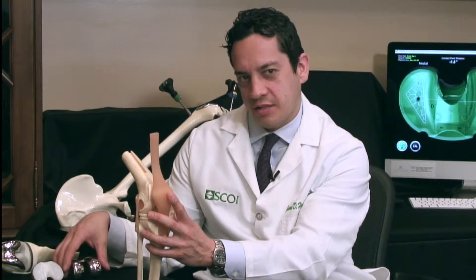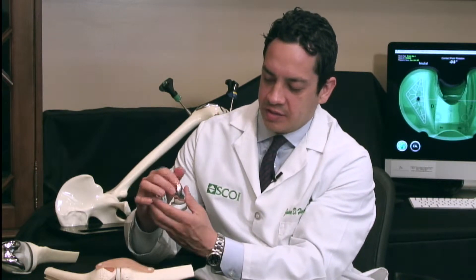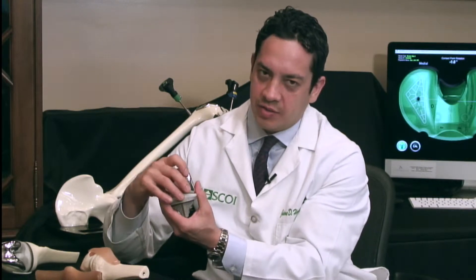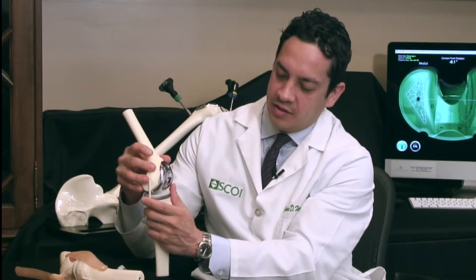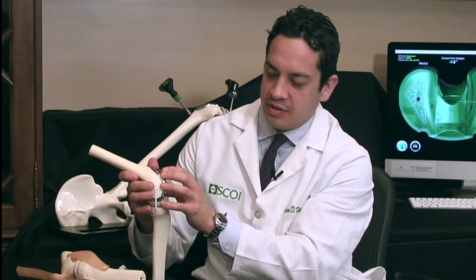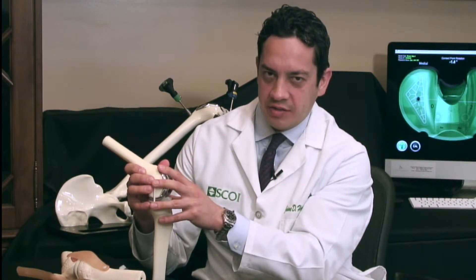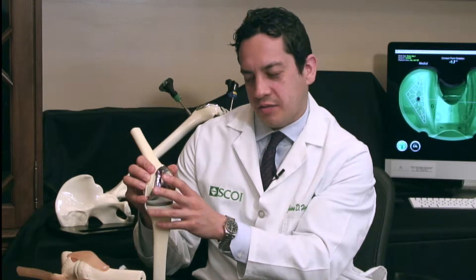Surgery for osteoarthritis is a knee replacement. These are the parts — metal caps that go on the ends of the rough bones. We remove the rough ends and replace them with these smooth metal parts. So when the surgery is over, the patient has a knee that is totally smooth and doesn't hurt. My technique uses a computer to put these parts inside the knee as accurately as possible.